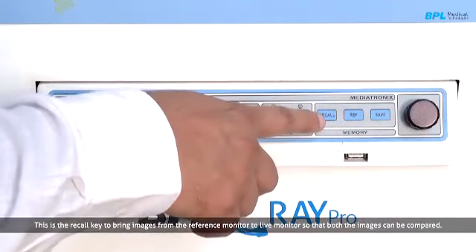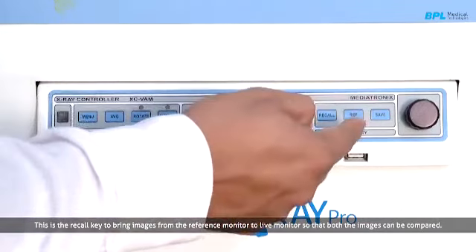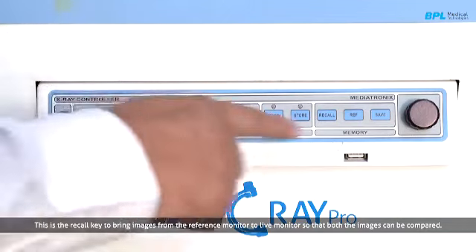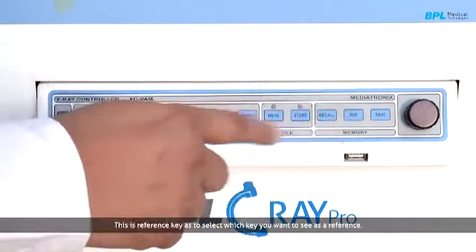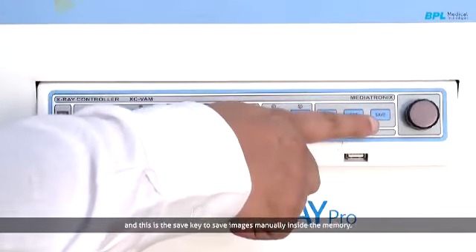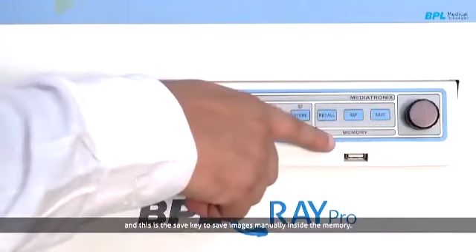This is the recall key to recall images available on the reference monitor to live, so that you can compare both the images. This is the reference key to select which image you want to see as a reference, and this is the save key to save the image manually inside the memory.